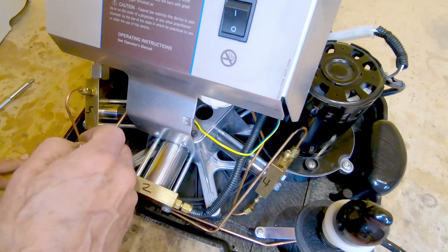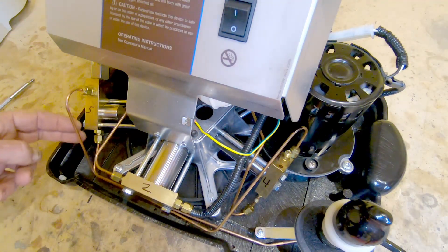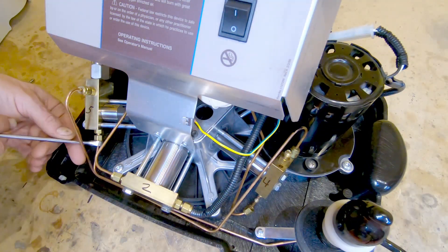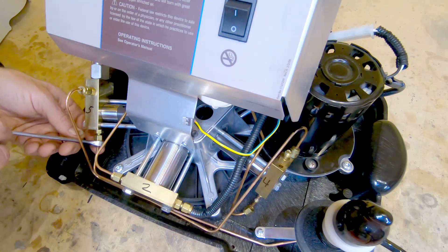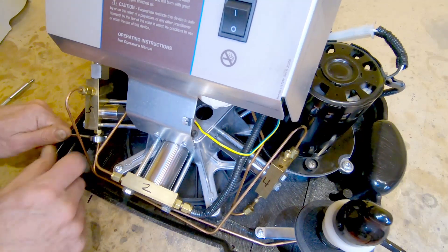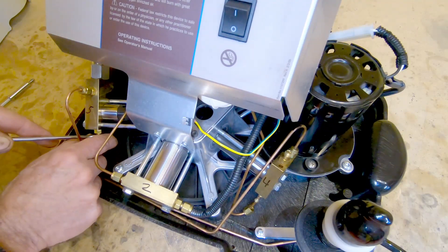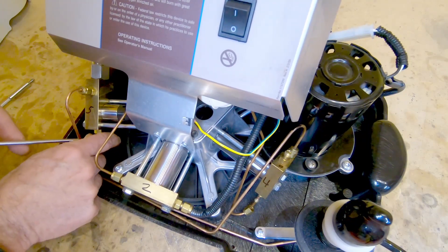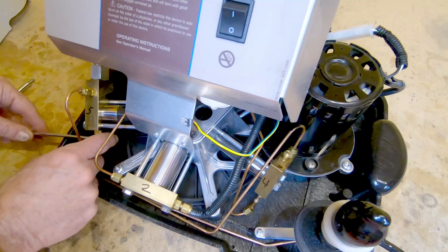The space is kind of tight in here. It's really important to be aware of these little tubes. They're not super fragile, but they're really tiny and they're made of copper, and you don't want to damage them because if you damage, kink, destroy, or bend them, you're probably going to be in for a very difficult time attempting to find a replacement. Also keep in mind that this plumbing, especially the fifth stage, is high pressure stuff, and high pressure can be very dangerous. So you want to make sure to be as careful as you possibly can.